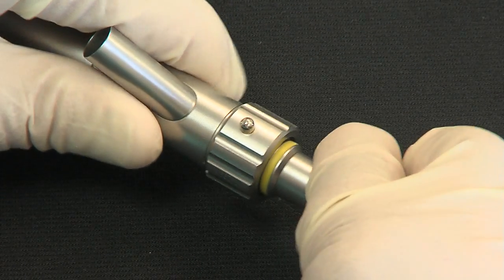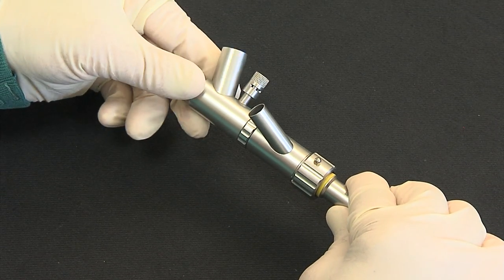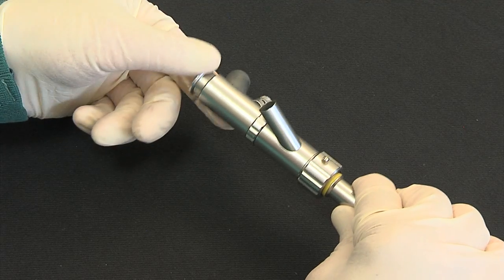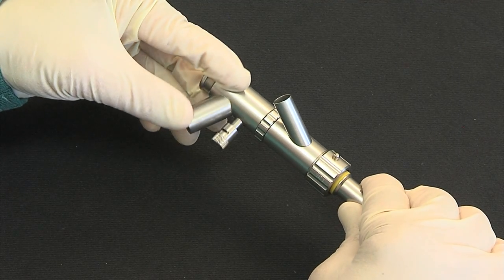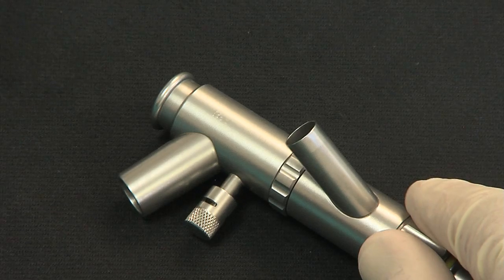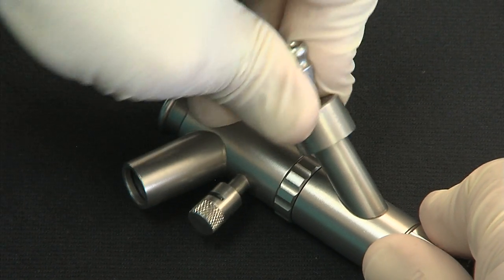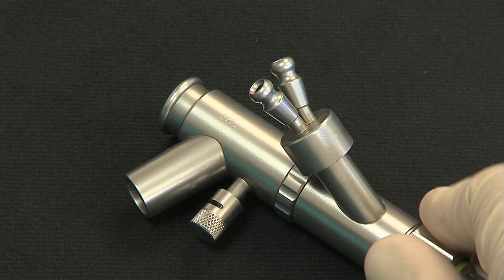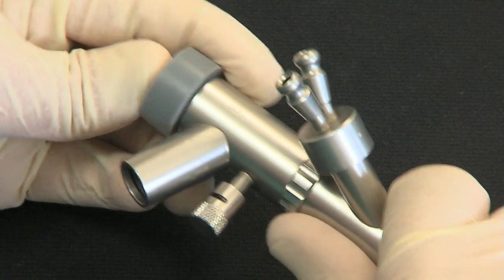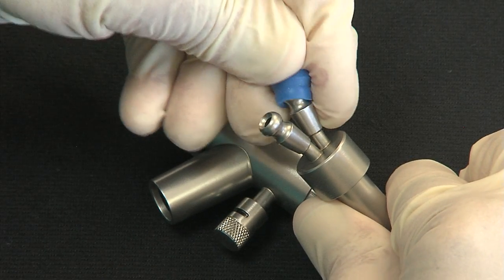The Universal Base has the following characteristics. Divided in two parts, the upper one is free to rotate over 360 degrees, while the lower part is fixedly connected to a tube by the Medlock. Silicone caps are attached to both axial and lateral ports, allowing obturation with one or two holes.